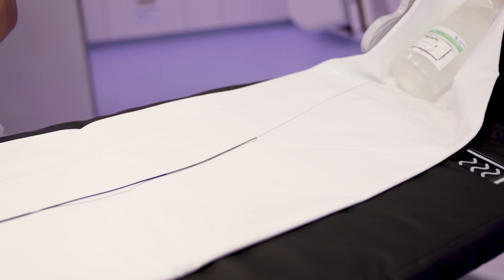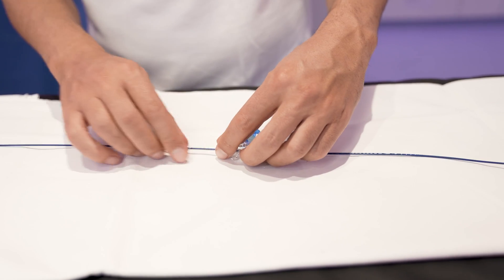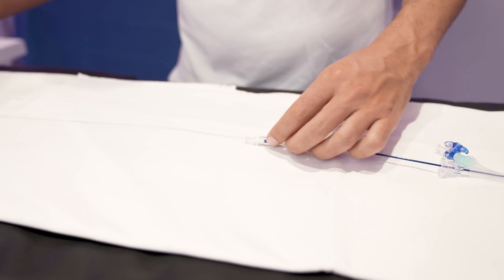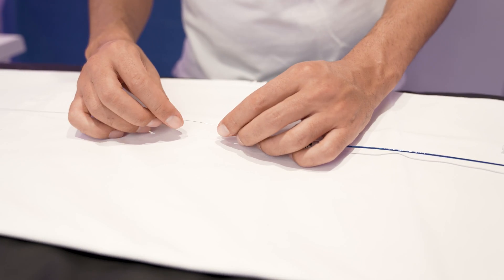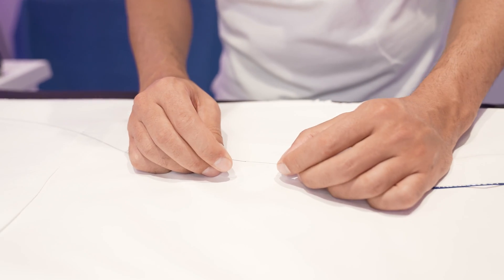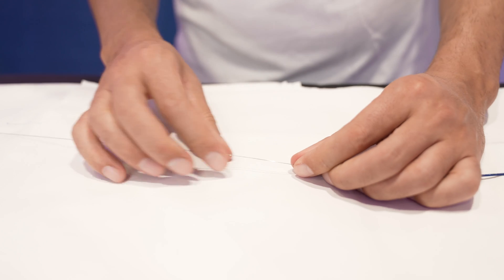This is now being done safely — you can now go all the way to the clot and then do your thrombectomy maneuver. If for whatever reason after the thrombectomy, or even before, you want to disconnect the wire, you can do this — just push it all the way until you have the connection part here. You can see this is the connection part and now I'm disconnecting it, which can be done easily. If for whatever reason you want to connect it again, this can be done easily as well, and now you have a smooth 3-meter 15-centimeter wire that you can use for exchange maneuvers.